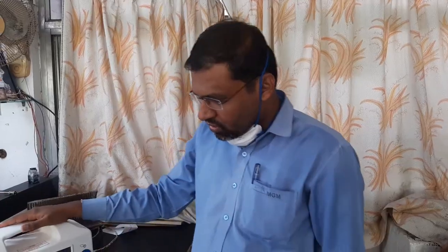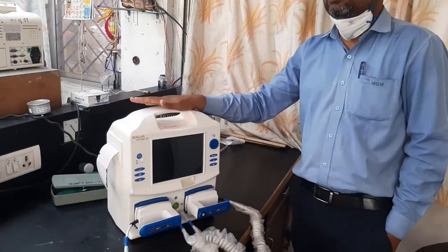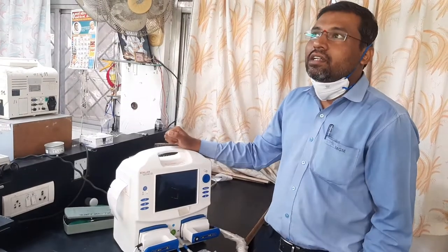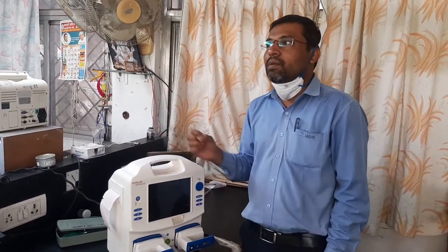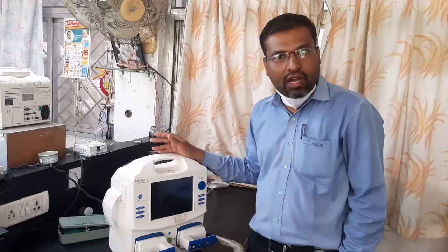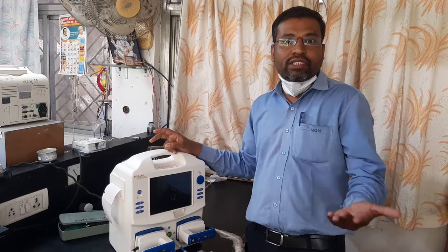Hello everyone. Today's video is about the defibrillator — this is a basic defibrillator device used in ICUs and OTs. Patients who suddenly get a cardiac arrest, whose heart stops beating suddenly, who get a heart stroke — to restart the heart pumping, doctors deliver a shock to the heart. For that, we use a defibrillator. Basically, defibrillators have two categories: monophasic and biphasic.